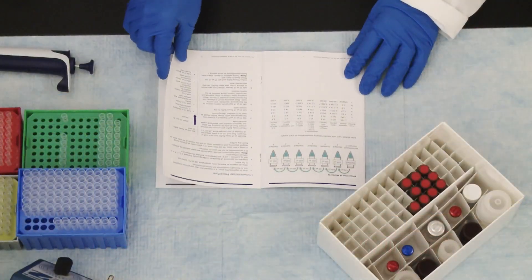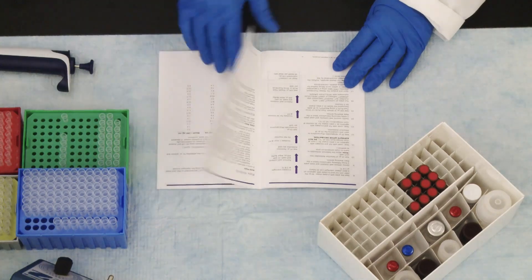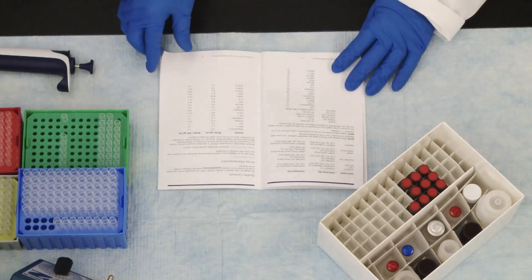For serum and plasma samples, refer to the kit protocol for instructions on how to dilute samples for use in the Milliplex multiplex kit.